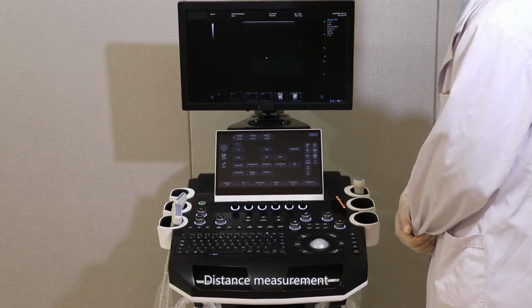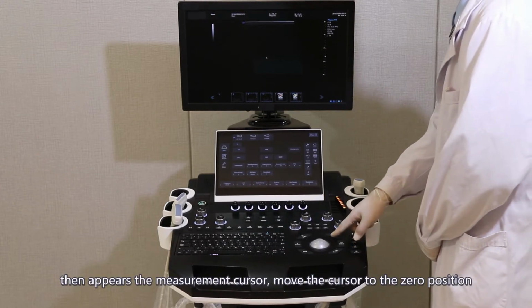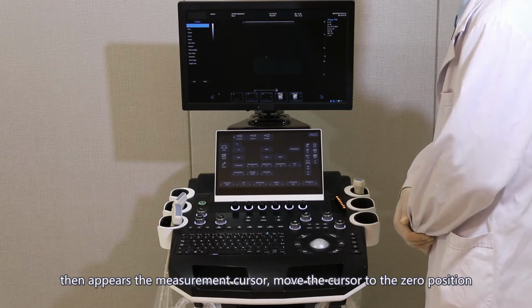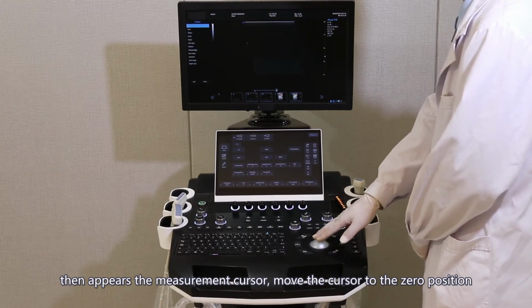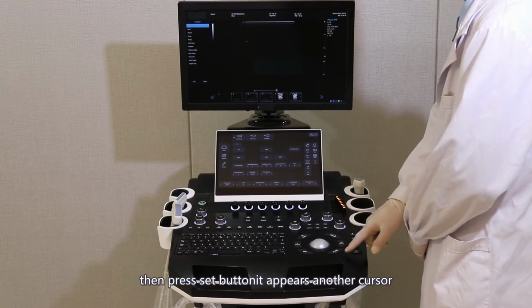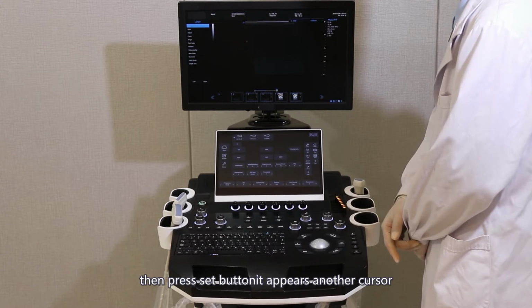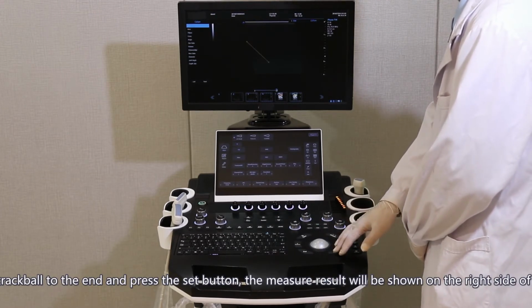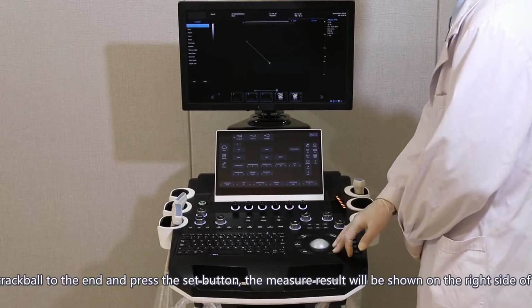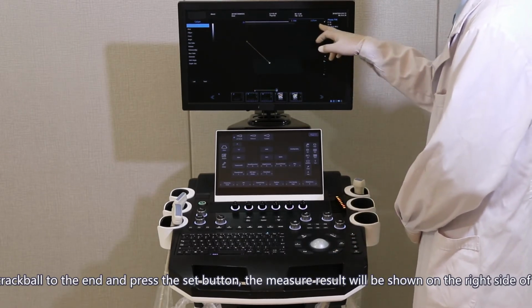Distance measurement. Press the caliper button. Then the measurement cursor appears. Move the cursor to the 0 position, then press the Set button. Another cursor appears. Move the trackball to the end and press the Set button. The measurement result will be shown on the right side of the screen.